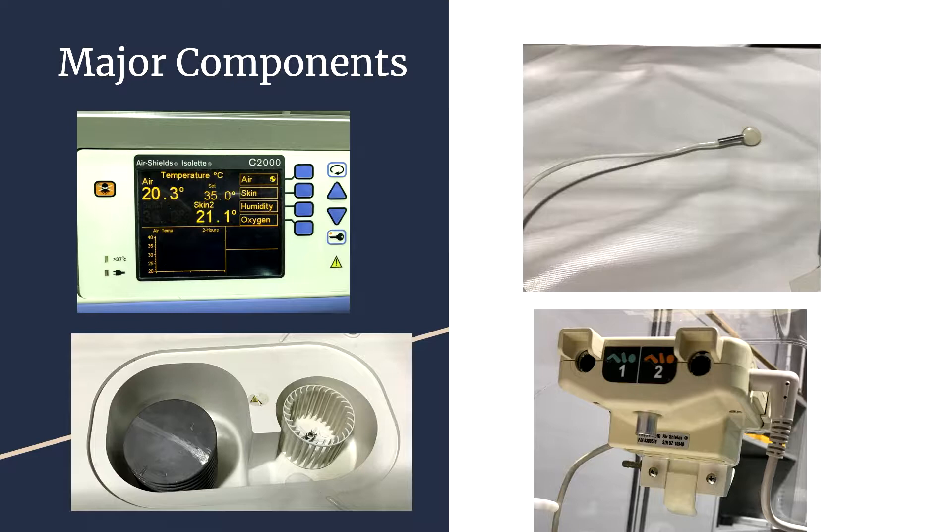On the bottom left is the main heating unit and the fan. The aluminum heating unit uses resistance to a current. A current runs through that big chunk of gray unit on the left of the picture and generates heat. On the right is the fan, an impeller. The aluminum heating unit can be taken off to clean in case it's dirty.